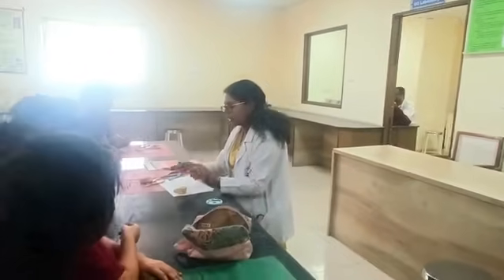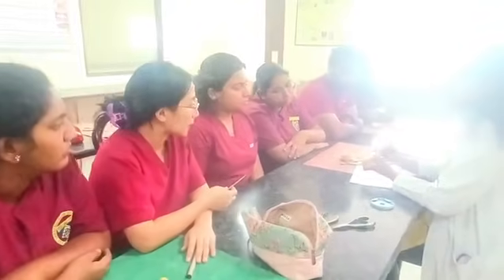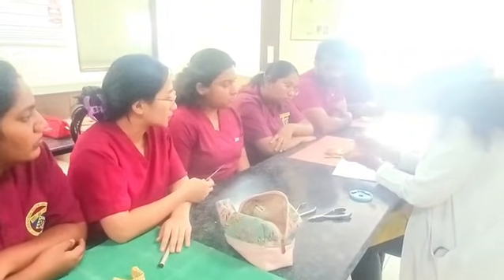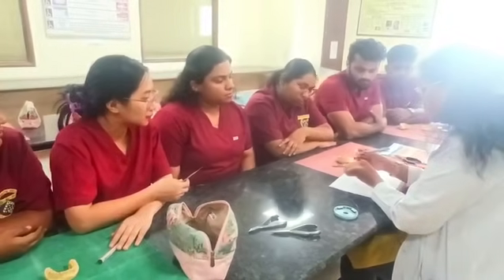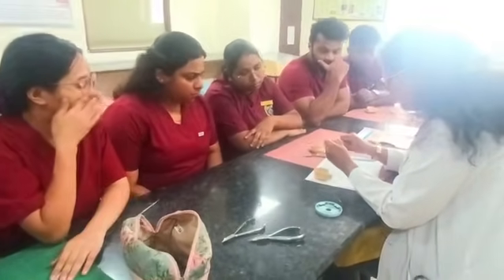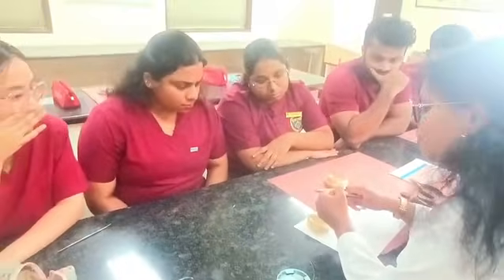Next, you are going to calculate the length of your arrowhead based on the height of the tooth. Then you are going to mark it. Okay, mark the height. Generally, the height is how much? 3 mm. Okay, then you will start making your arrowhead. So what you are going to do? You are going to mark exactly where it is marked. Then you are going to give a bend.